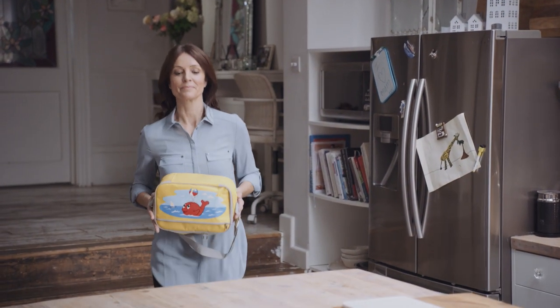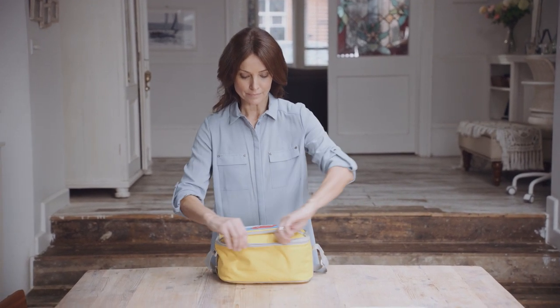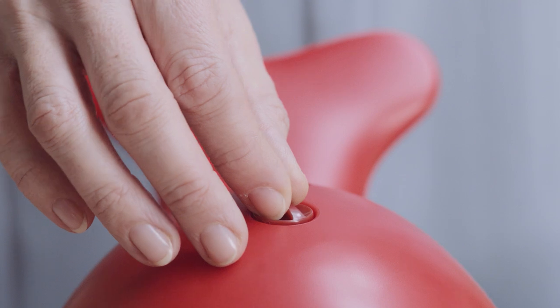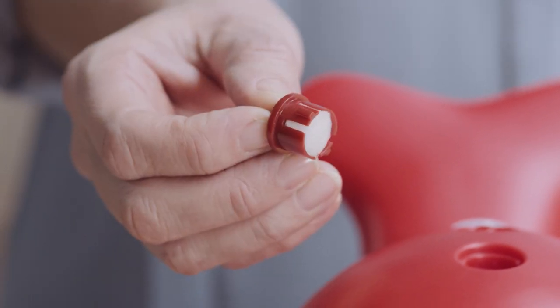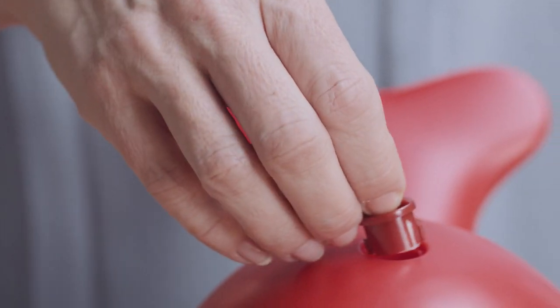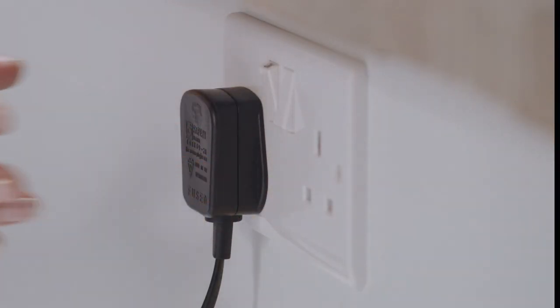Place Philips Willis the Whale on a firm flat surface near an electrical outlet in an area where the user can be seated comfortably during their treatment. Check that the filter is not clogged, dirty or wet and replace if necessary. Operating the unit with a dirty filter can impair proper operation and cause damage that's not covered by the warranty. Plug the power cord into the electrical outlet.